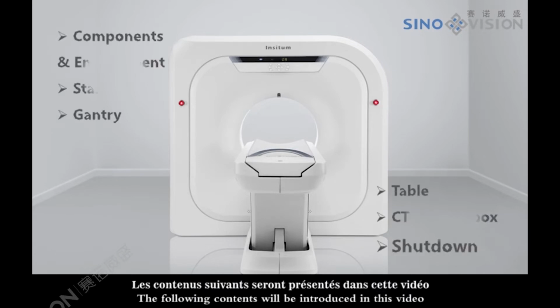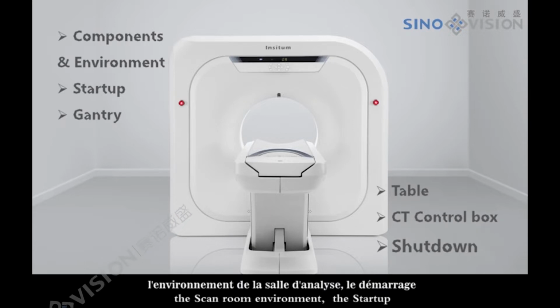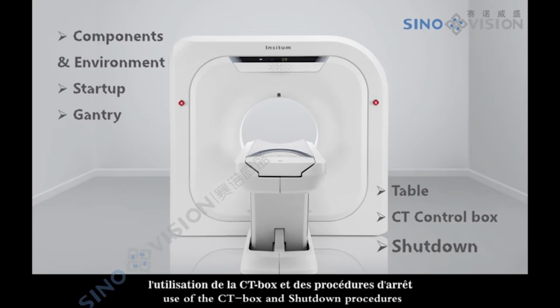The following contents will be introduced in this video. CT system composition, the scan room environment, the startup, control and use of the gantry and the patient table, use of the CT box and shutdown procedures.